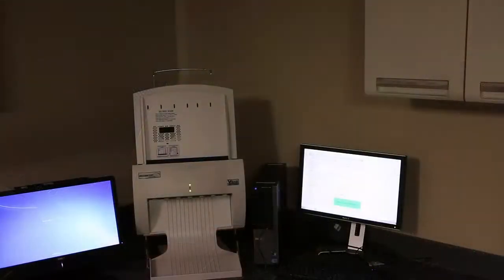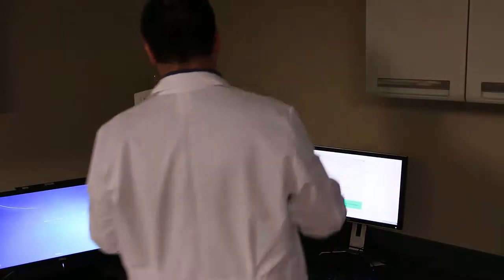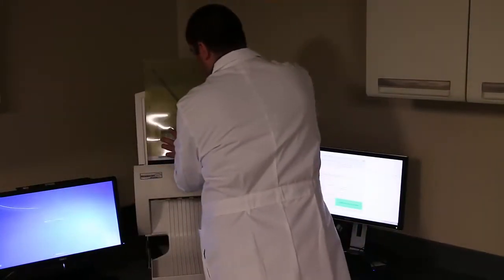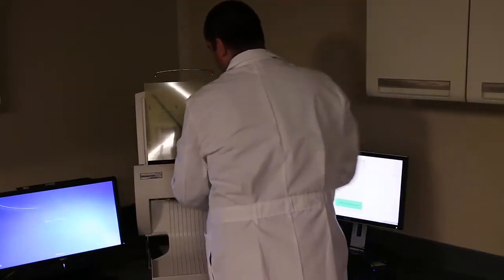Take that film down to the film scanner. I like to align it on the left hand side of the scanner.